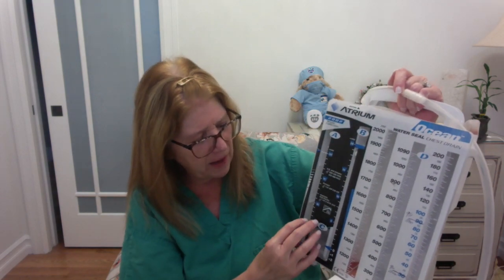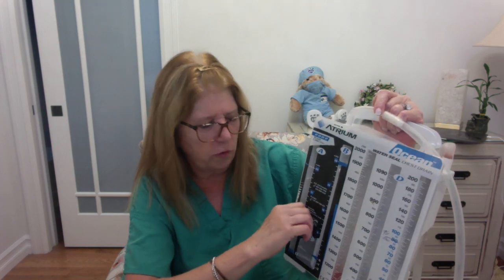Now, I'm going to try in some way to explain to you about the dry suction. So the dry suction chest drainage unit is going to look just like this. The difference being there will not be a port at the top to put water into the suction chamber. Instead, down here, there is this dial. And the dial, you turn it to, again, 20. It still gets connected to the suction, but there's no water involved. It is a dry suction. So you use the dial to determine how much suction you want. And again, most likely, it's going to be that 20 centimeters of water suction.